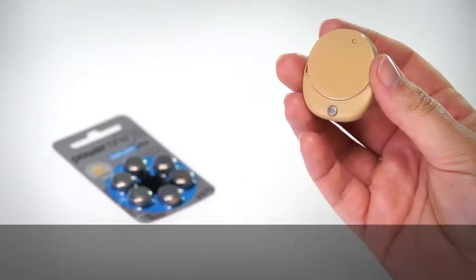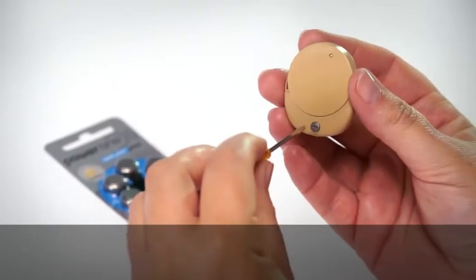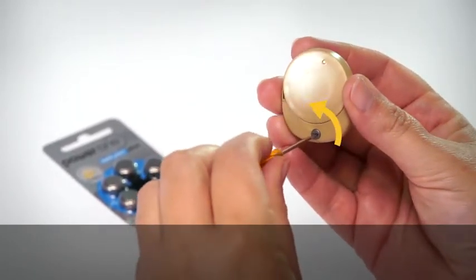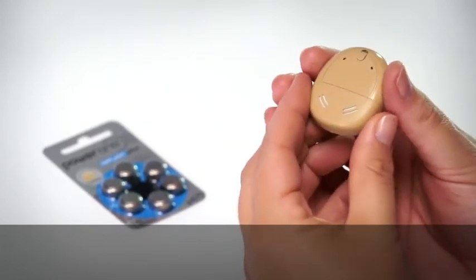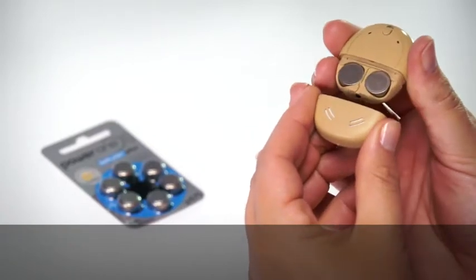If the battery cover is locked, turn the locking screw anti-clockwise to unlock it. Remove the battery cover. Use your fingers on the sides to pull the cover off.